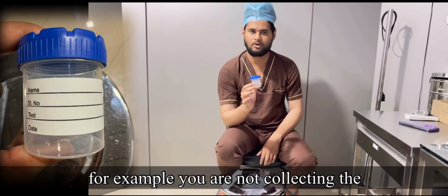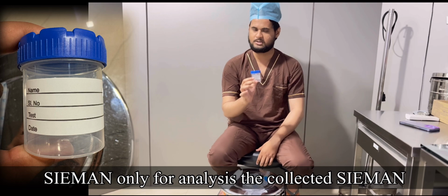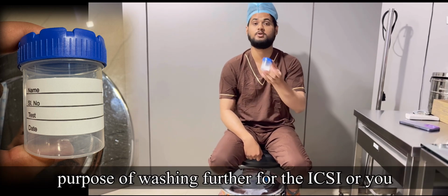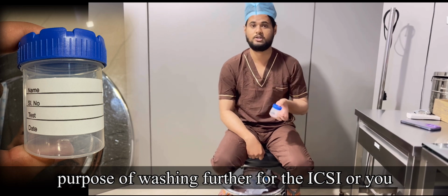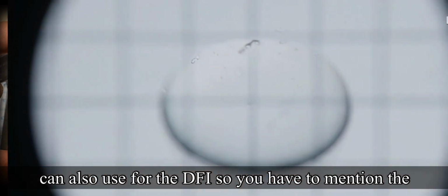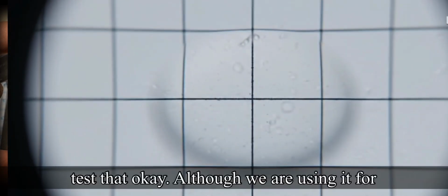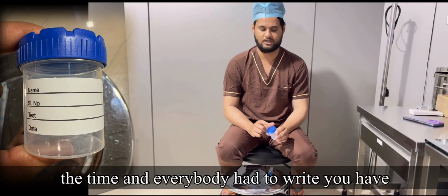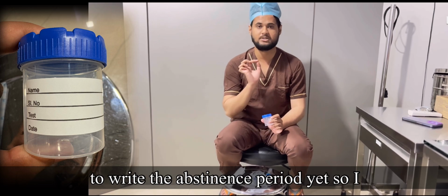For example, you are not collecting the semen only for analysis. The collected semen can be used for the purpose of IUI, for washing, for ICSI, or you can also use it for DFI. So you have to mention the test, that for now we are using it for the purpose of semen analysis. Over the top of the container, you also have to write the abstinence period.